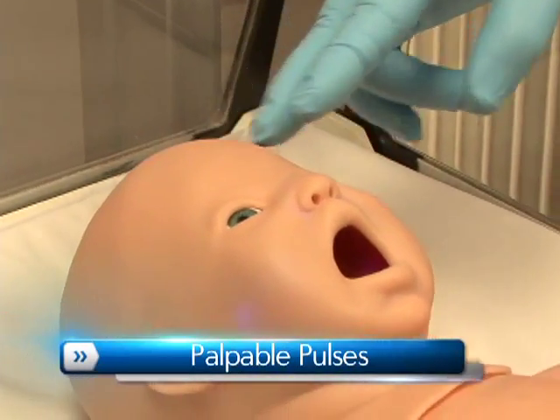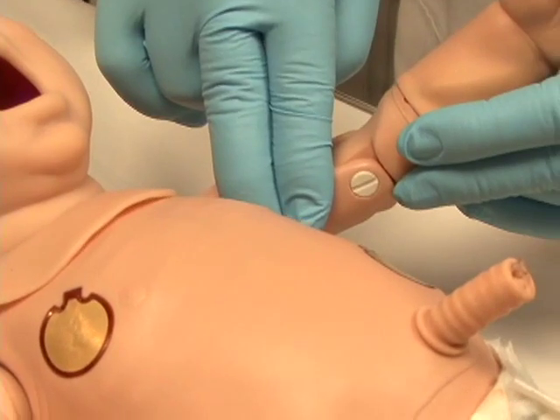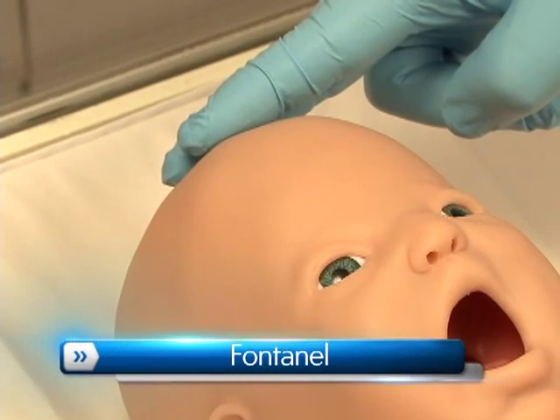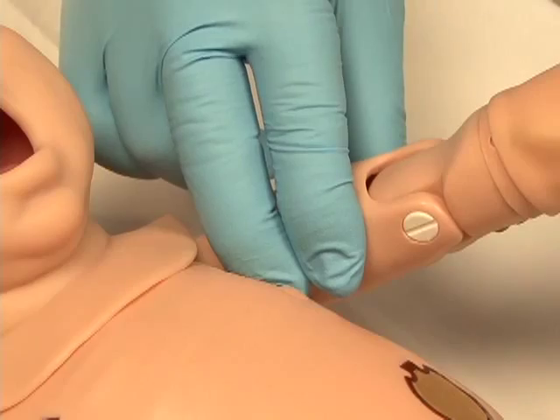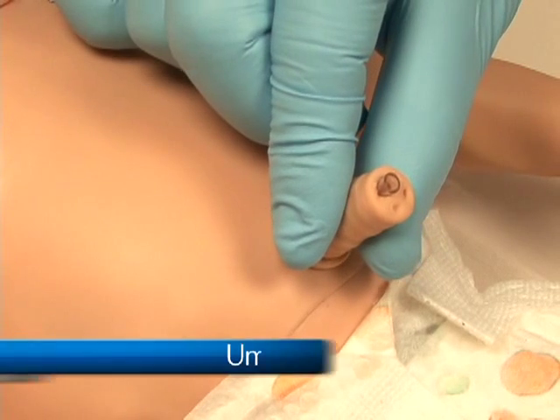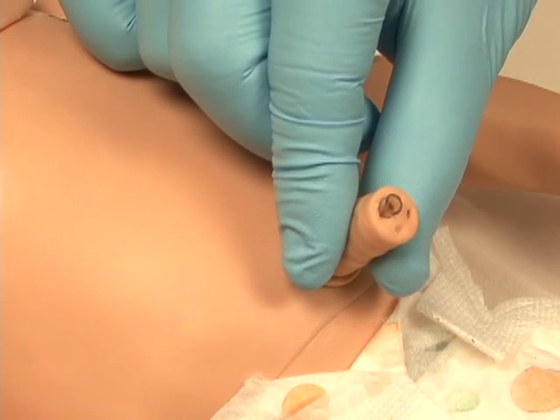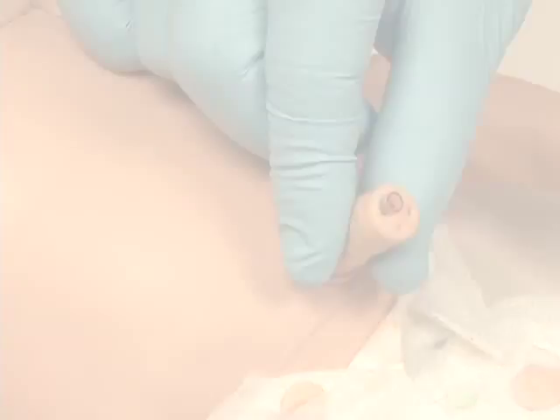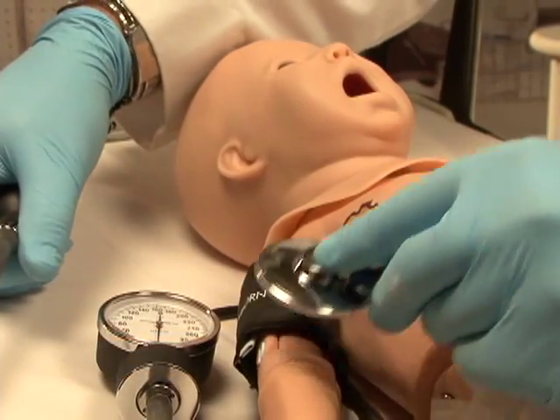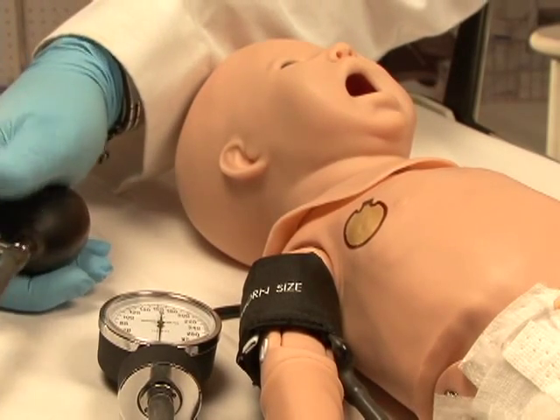Newborn HAL's palpable pulses are dependent on blood pressure. The following pulses are available: fontanelle, brachial, and umbilical. Users can also disable distal pulses. Programmable blood pressure can be read using a sphygmomanometer, and users can auscultate the Korotkoff sounds.